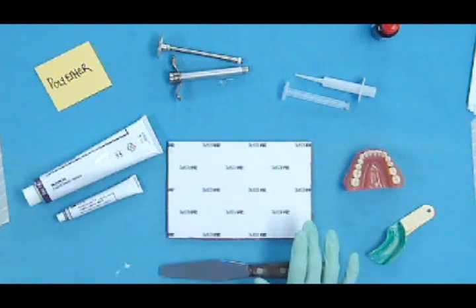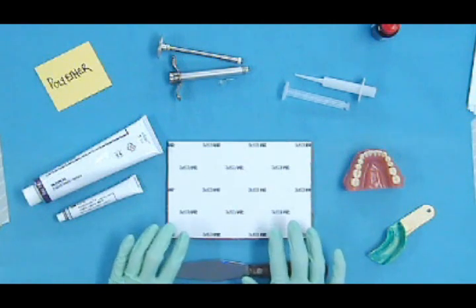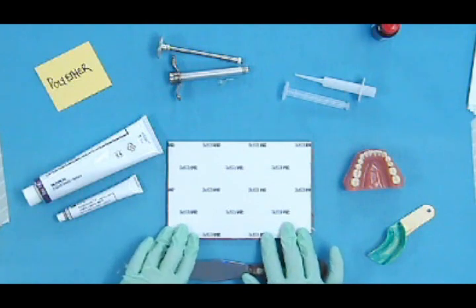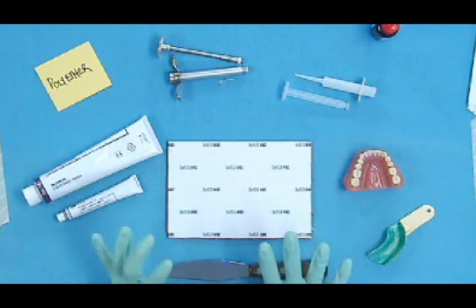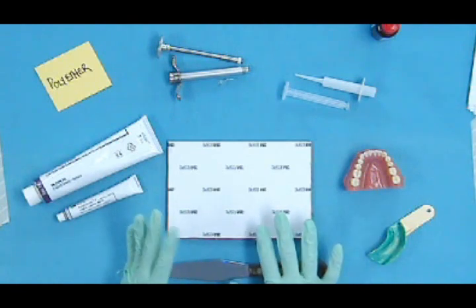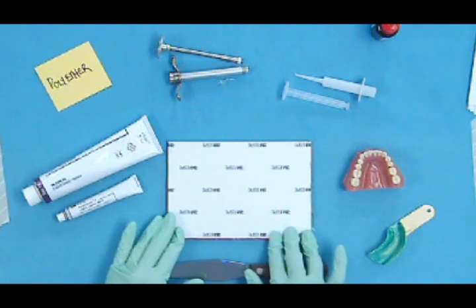Again, this is mixed on a pad. The difference in this material and the polysulfide, other than the chemistry of it, is that you would be using this for a fixed restoration as opposed to a removable restoration mostly.